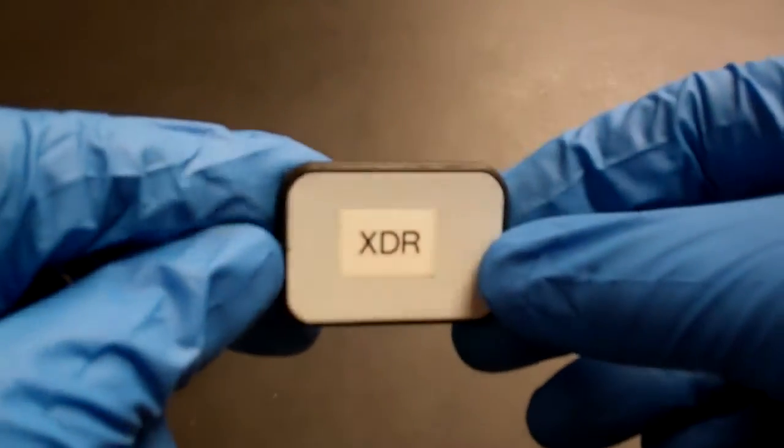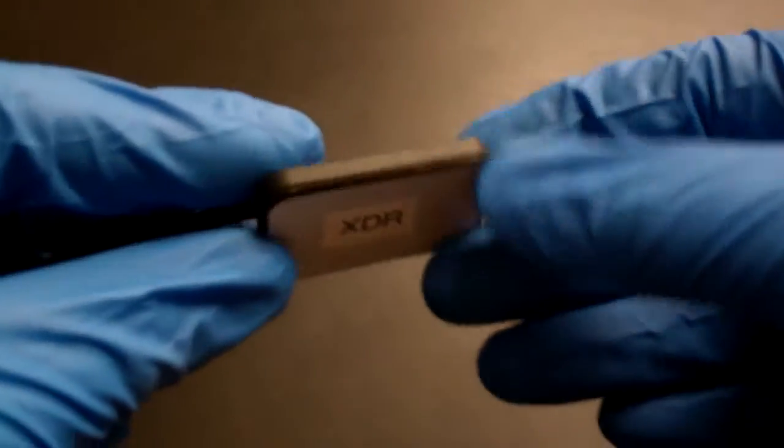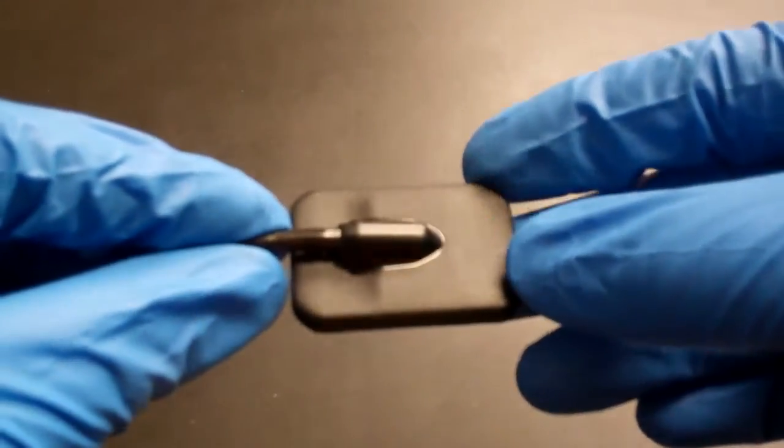This is the latest sensor from XDR. It has a white face and a black back. You can see how it looks on the back side there.